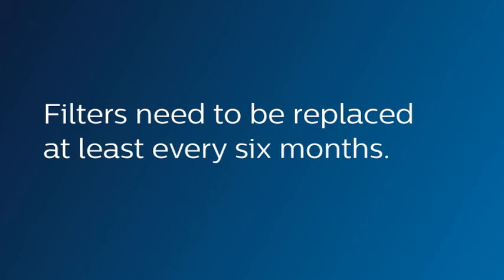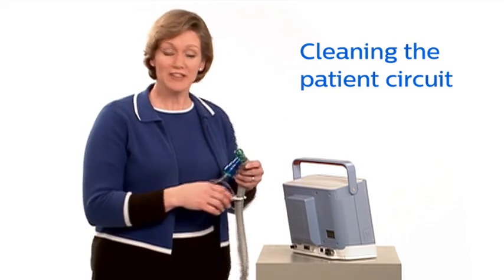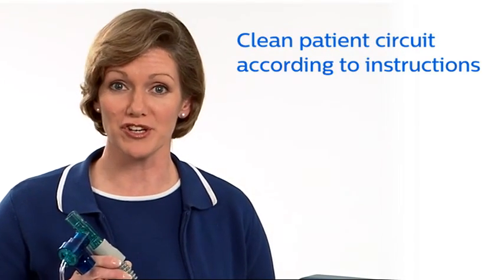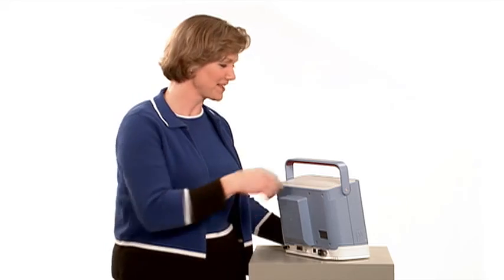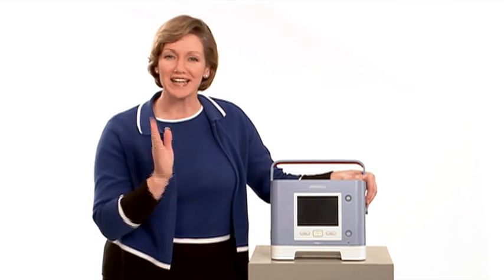Even with regular cleaning, filters must be replaced at least every 6 months. Use only Respironics supplied filters in Trilogy 100. To prevent infection, cleaning the ventilator circuit is essential. Follow the home care provider's instructions on how to clean the circuit and how often it should be done. With proper care and maintenance, your Trilogy 100 can provide safe, reliable ventilation in the home setting.